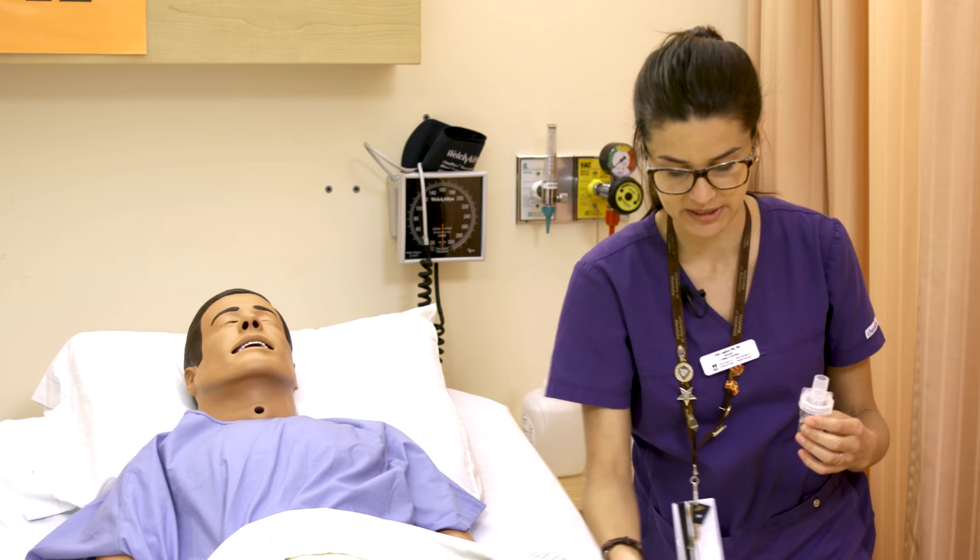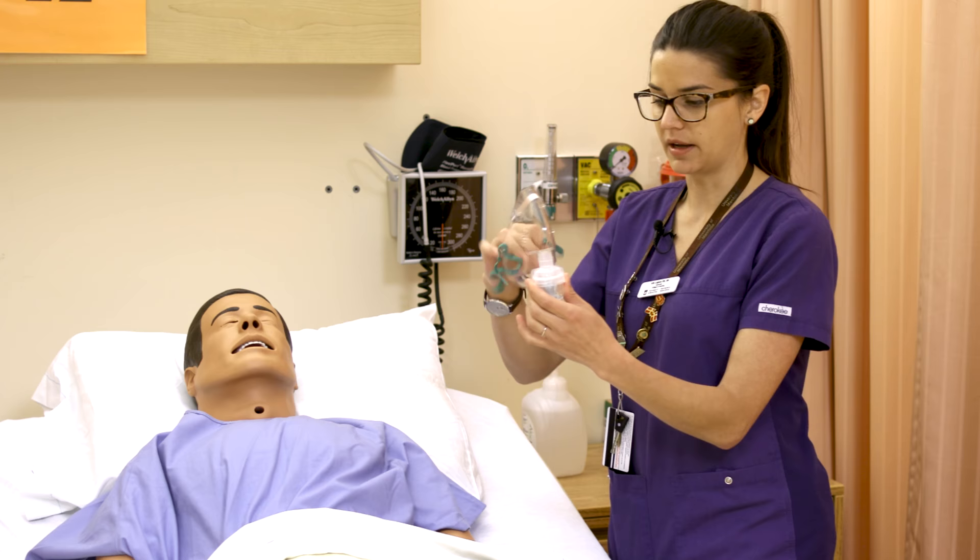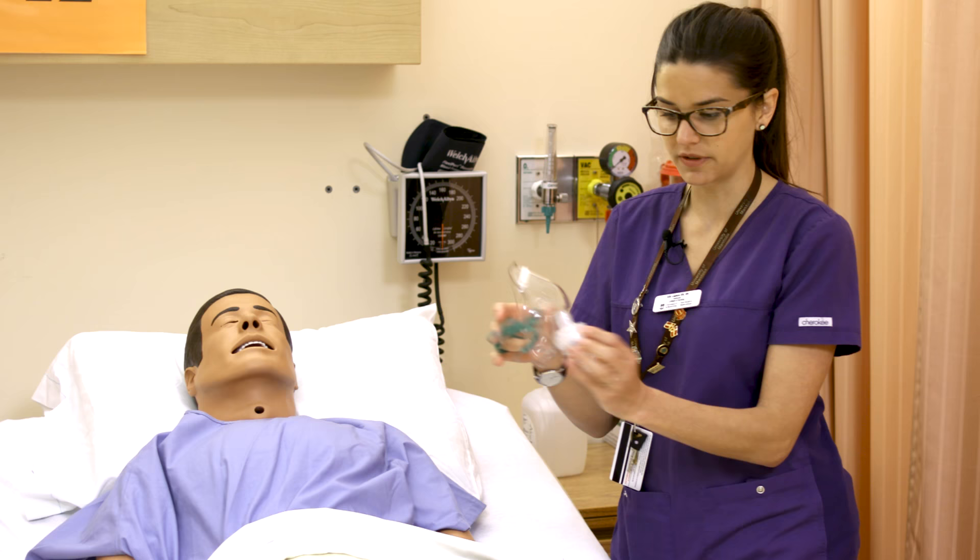In the lab we do keep the nebules, so please set them aside for the next person. The nebulizer can attach quite easily to a simple face mask, and then connects to oxygen — that's how it works with the face mask method.